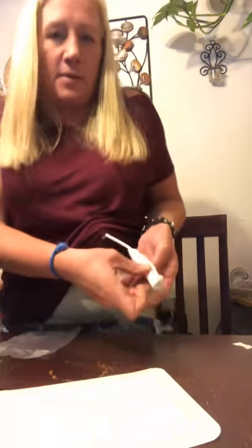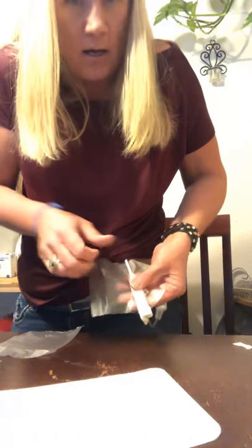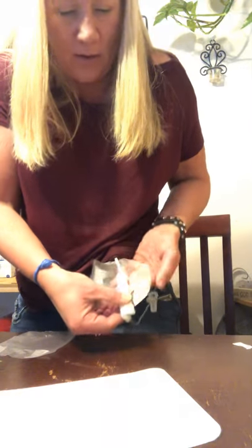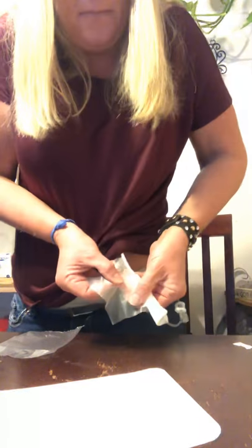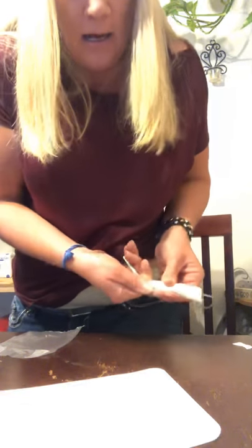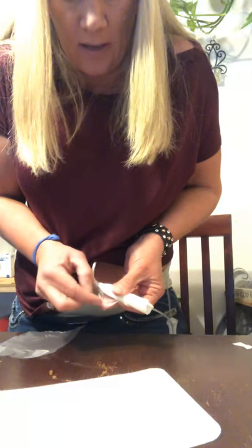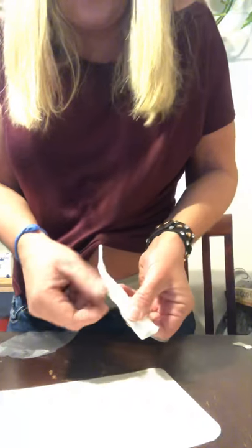Stand up a little bit and put one piece on so you have a little bit up here and a little bit up there, covering halfway down. Close it tightly until it sticks to the other side. Then just take it with your thumb and roll it over. At the corner, fold a little bit like that and fold it over so it kind of sticks — when you get out of the shower you'll have a little flap to peel off more easily.